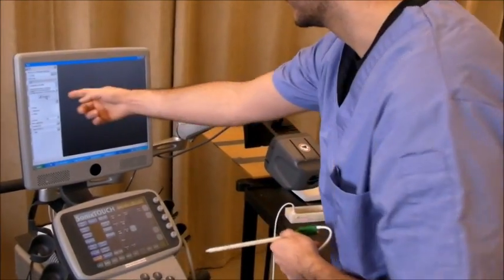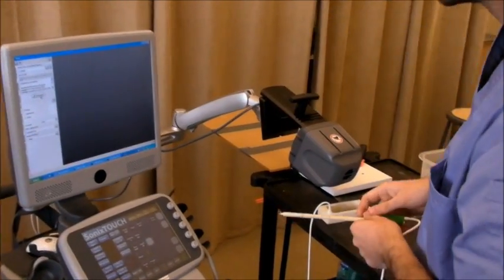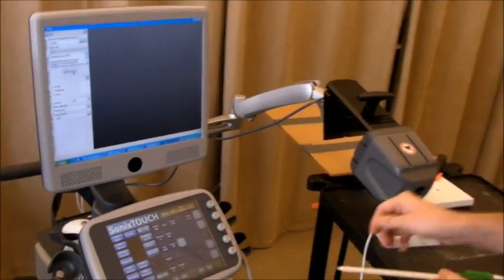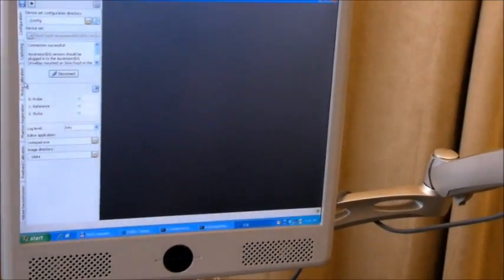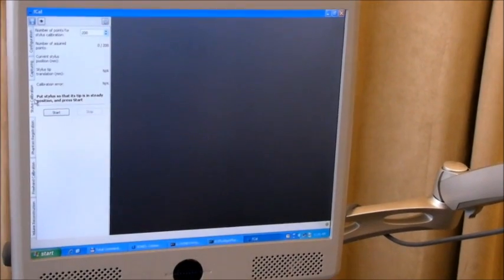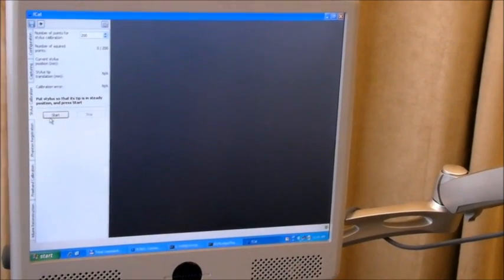As you can see, all the tools are visible. I'm proceeding to the stylus calibration phase.